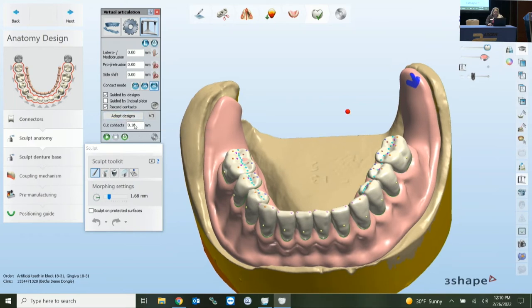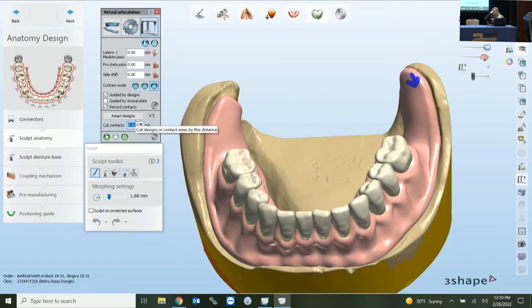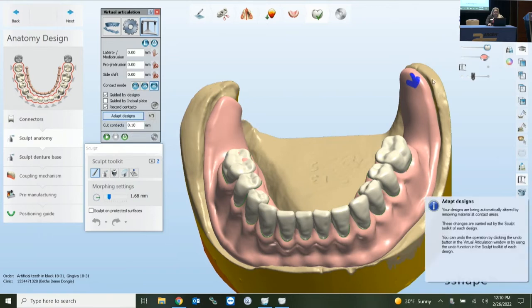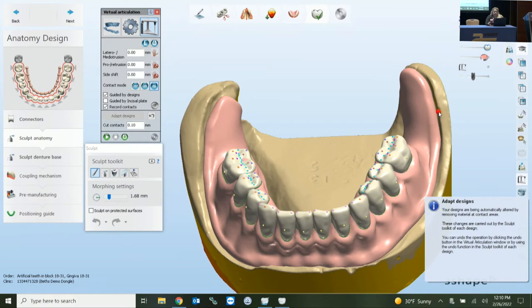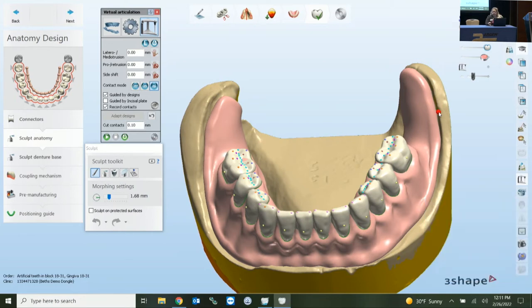Under adaptation on the left, you have a setting telling the system how much to cut — for example 0 or 0.1 millimeters. Then you click 'Adapt Design' and it takes care of that area. It can do it automatically based on that button or you can manually adjust it with your sculpt toolkit. You cannot adapt it until after your connectors are complete — if you go through excursives during the library phase, you'd have to manually adjust those areas.